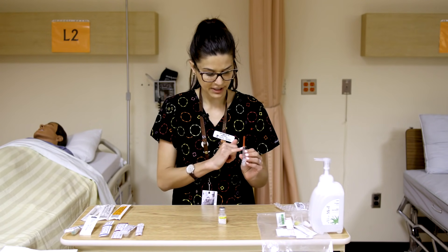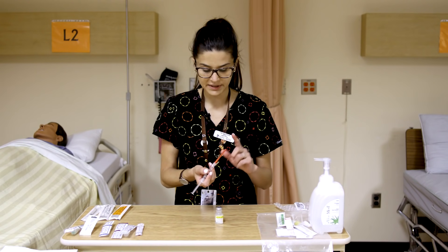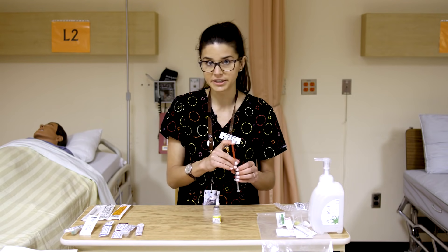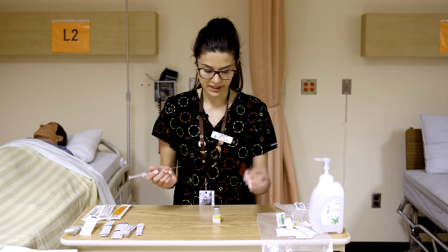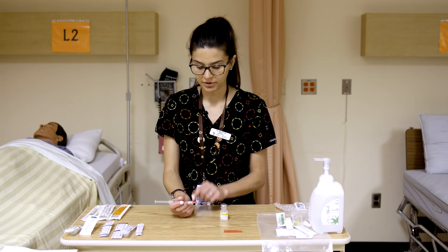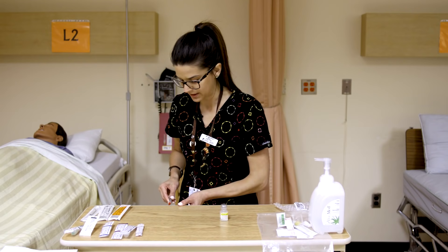Say we want to take out 2ml of our normal saline. Before we inject into the vial, we're going to want to inject some air into it — this helps offset the vacuum. The blunt fill's large gauge also helps draw viscous solutions through, and it prevents unnecessary blunting of your injection needle. We will change this blunt fill to an injection needle once we have our fluid in the syringe. It's good to stabilize your hands especially at first. Recap using the scoop method, pressing the cap on a surface to close it.